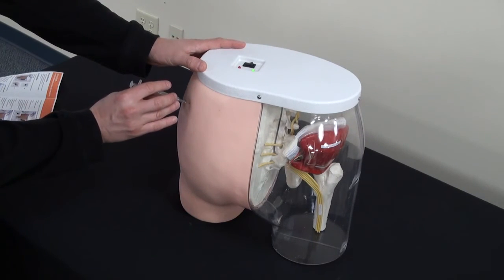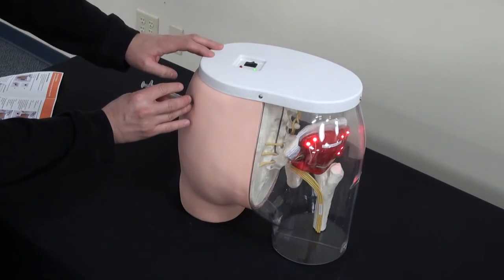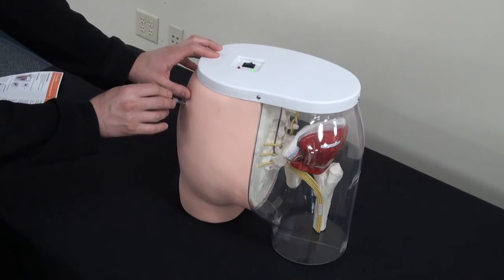But if you push too far in, red lights will go on. This indicates that you are too far in and you have struck a nerve.